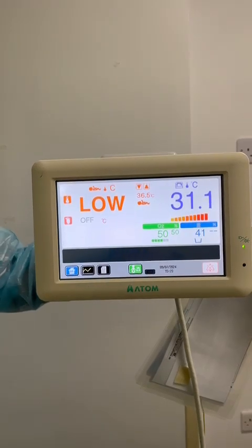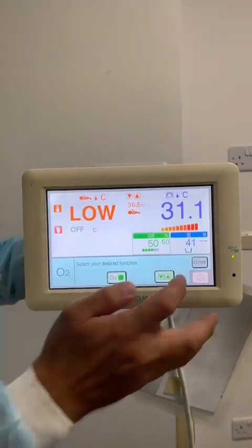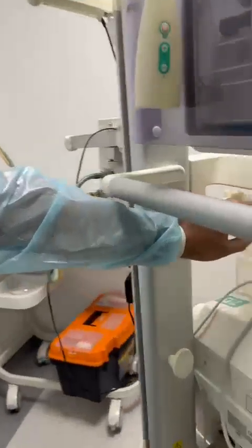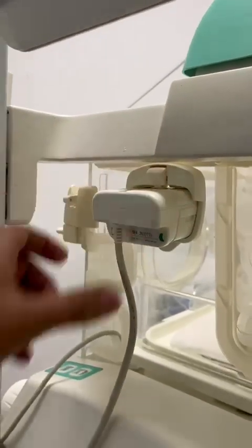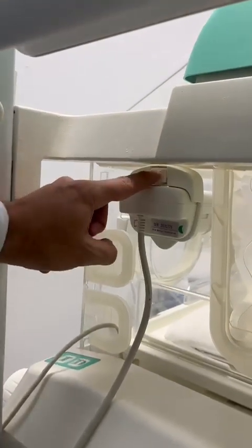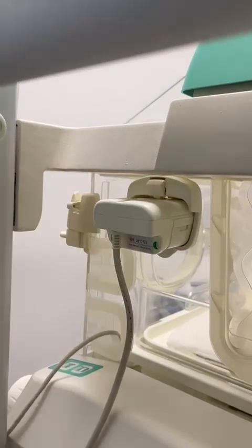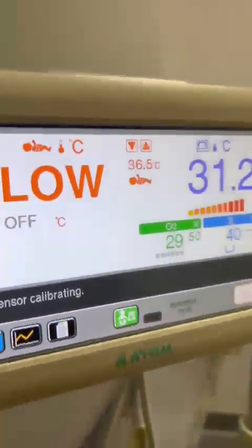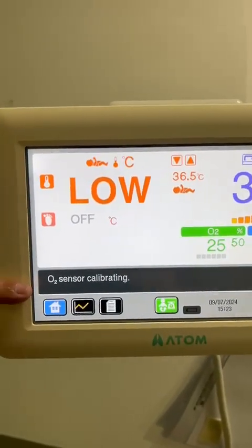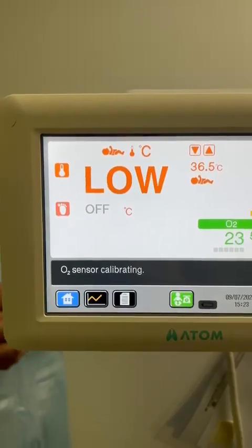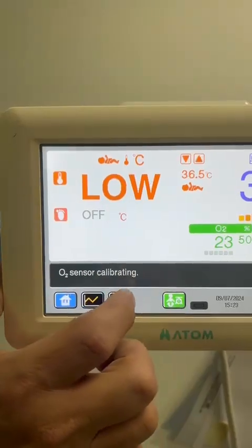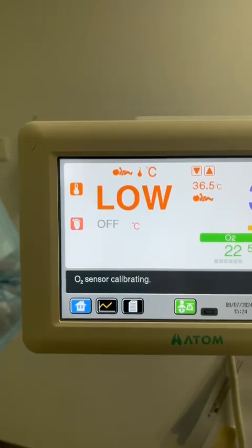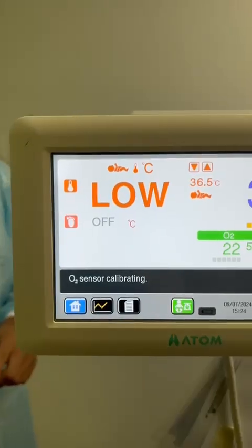The last parameter is oxygen. Before we start giving oxygen, we have to do oxygen sensor calibration. To do that, press and pull out the sensor module — press this lever and pull out. Once we pull out the sensor module, go to the display and select sensor calibrating. Usually it takes 20 seconds. If calibration passes, you will get a message that the sensor is auto-calibrated. If failed, you will get a calibration failed message, and it will identify which sensor failed — right or left — because there are two sensors.